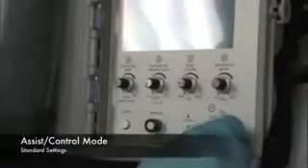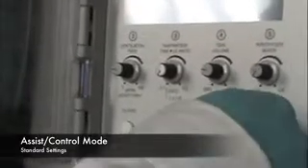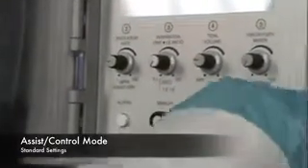Then you're going to figure out what mode of ventilation you're going to use. We'll talk about modes of ventilation briefly, but this certainly is not a substitution for a true ventilator management course. Commonly, a patient that requires full support from the ventilator is best served in the AC mode. This stands for assist control.